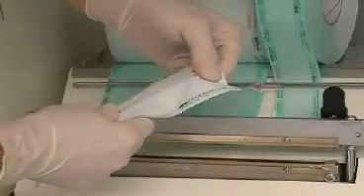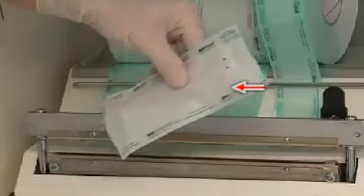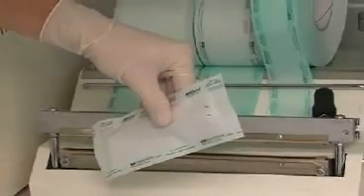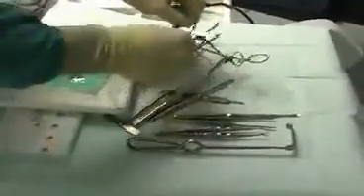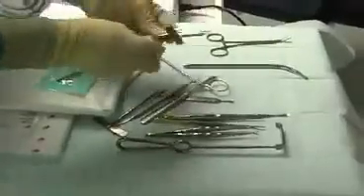Sometimes the instruments are shrink-wrapped in a special paper foil that allows for short-term sterile storage. However, the package cannot be damaged or the instrument immediately becomes non-sterile. Sterile instruments are useless if non-sterile covers are used. There are different options in terms of sterile covers, and the use of disposable articles is safe, as these are sterilized by producers through radiation and are thus free of germs.